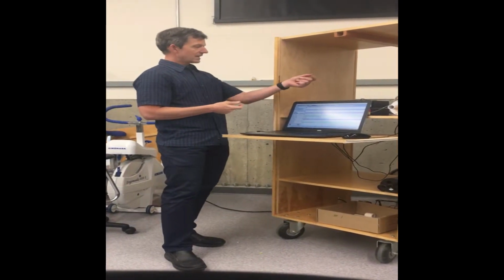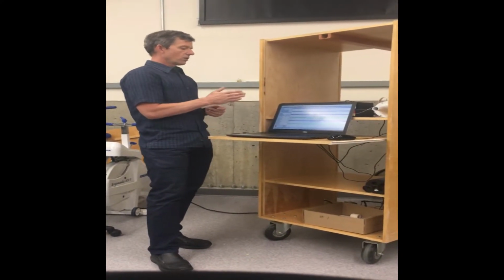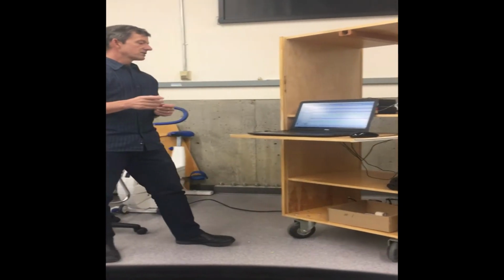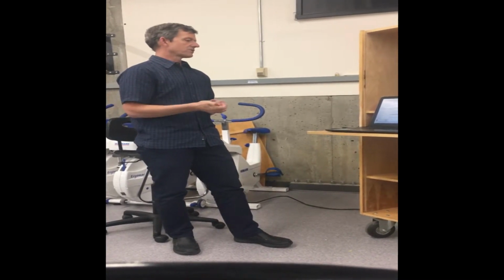We're going to disconnect the tube so that no airflow is flowing through. We're going to click record. We're going to record for 10 seconds with no air flowing through. Then we're going to hook the other end of the tube into the mixing chamber, and then we're going to have the air flowing through from the subject of the flow head.